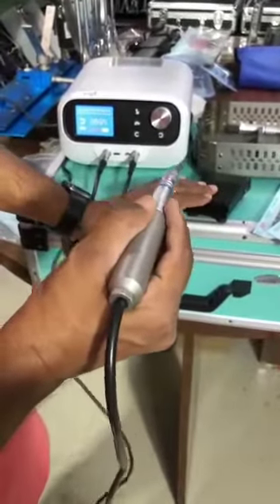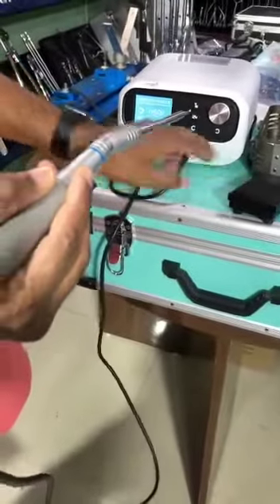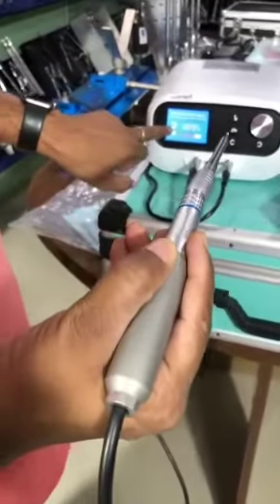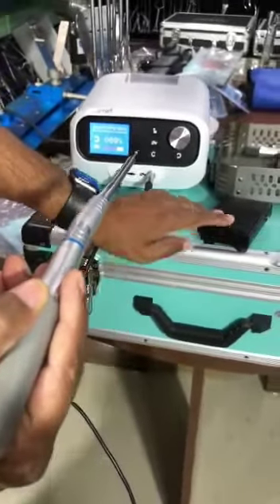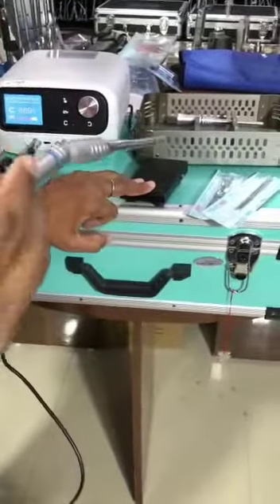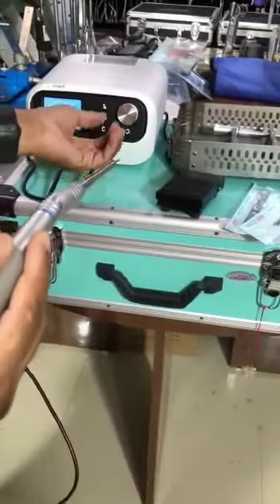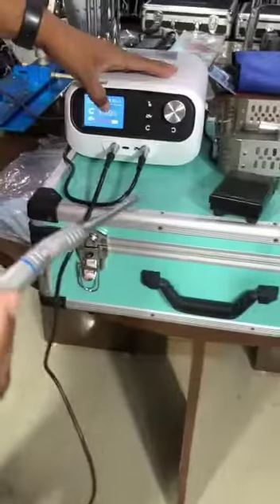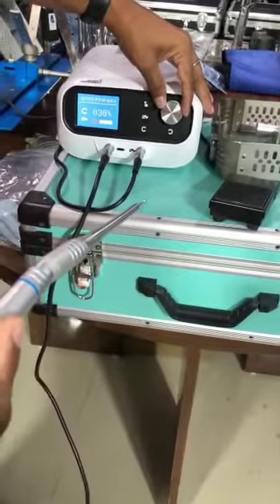Let's press this. Focus on this — it's a spotlight. We can fix the speed from here. Now 69% for RPM. We can press whatever you want.